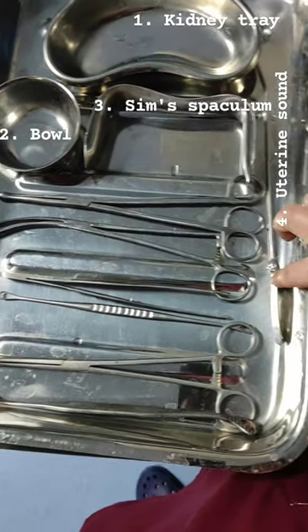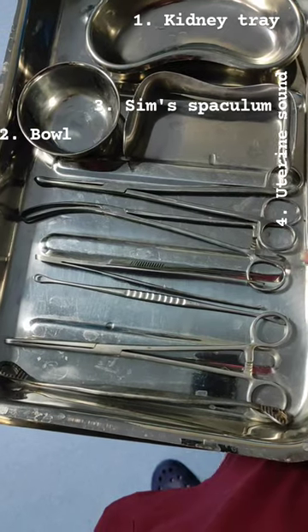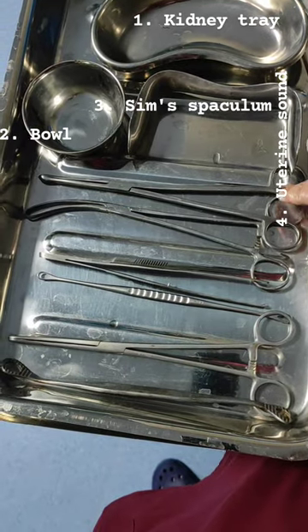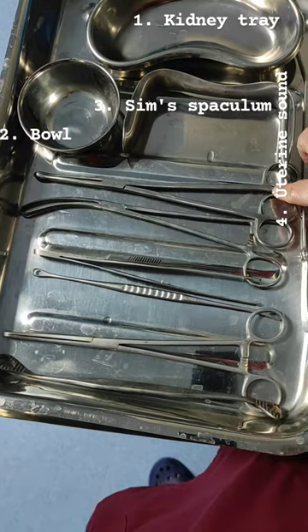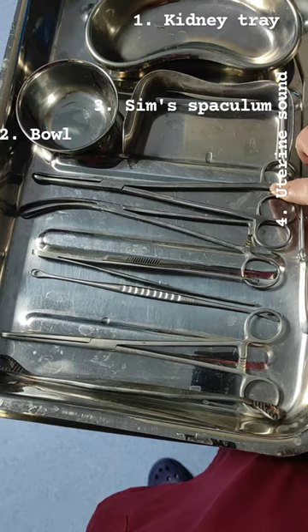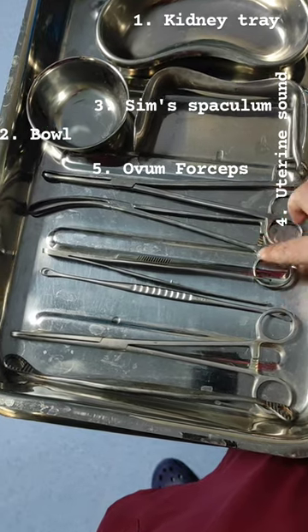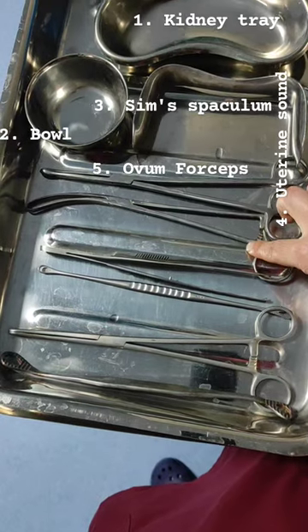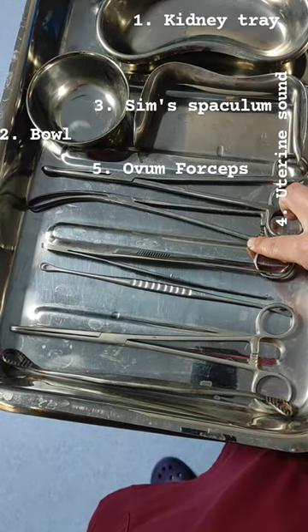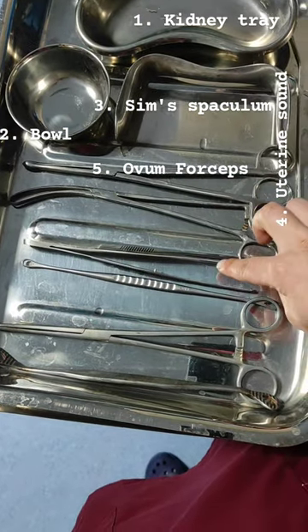Next is the uterine sound, used to measure the length of the uterus and cervix, which is also called the utero-cervical length. Next is the ovum forcep, used for evacuation of the product of conception or any tissue.